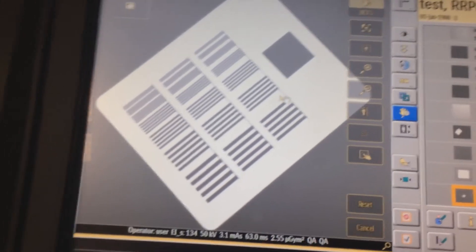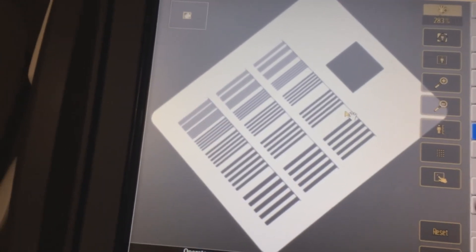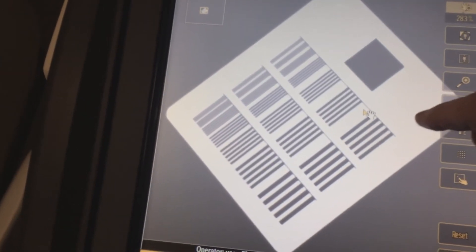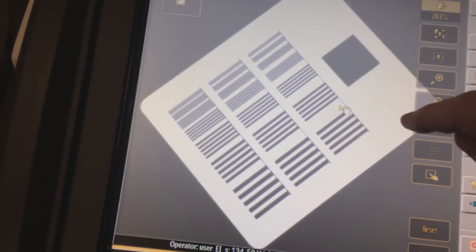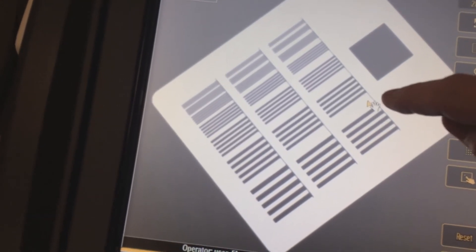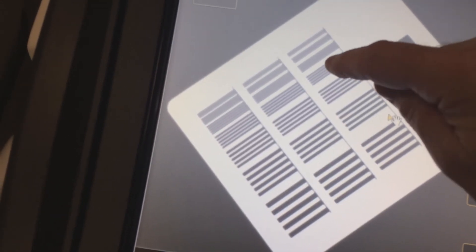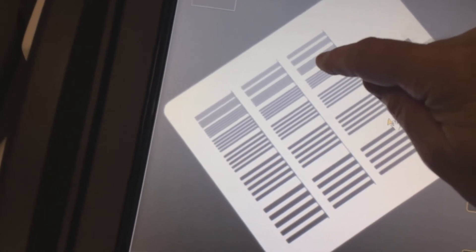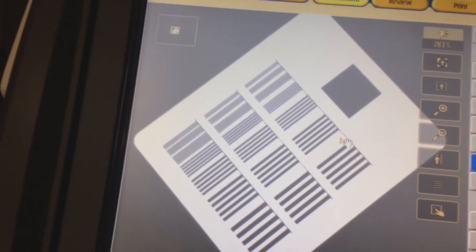The test object is testing resolution, and you can see on the screen that I've formed an image of the test objects here. The purpose of the test is to count the number of lines where I can make out the individual bars. So here I can count 3, 6, 9, 12, 15, 16, 17 — so I can see the 17th group.